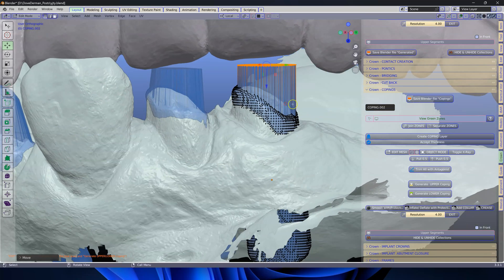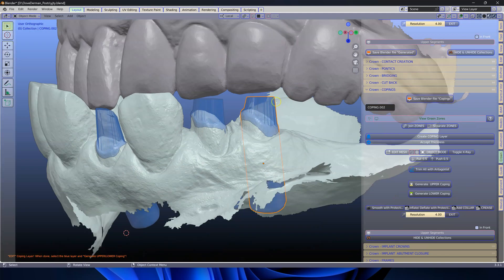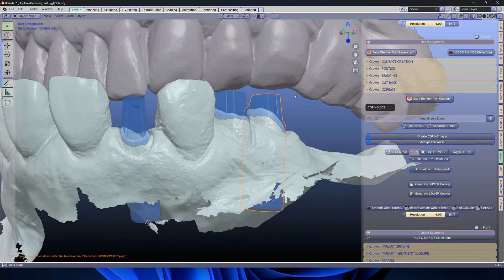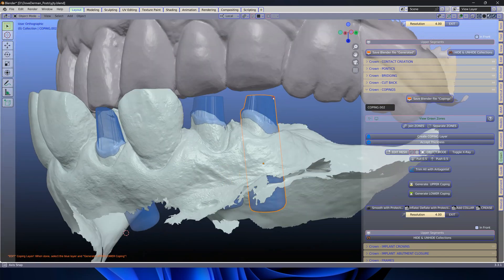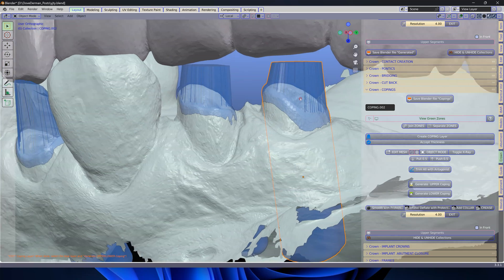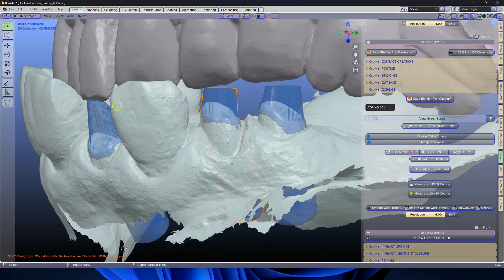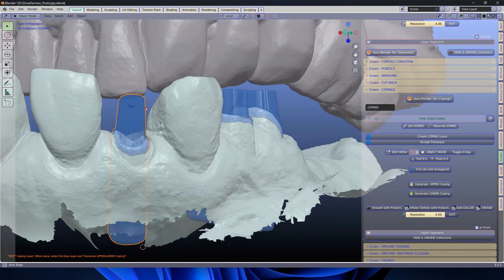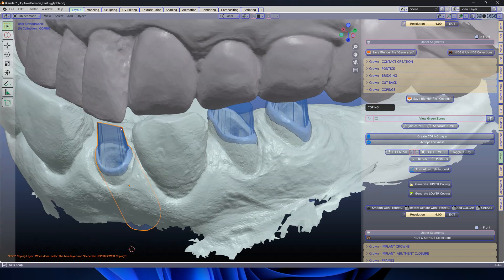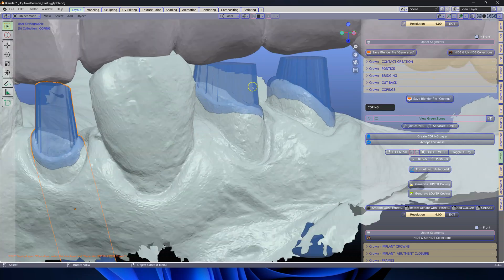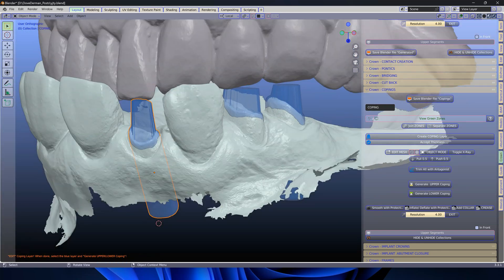This is looking good. S to scale to make it a little bit less parallel. Now ideally I want to sculpt smooth these because they've got a lot of ridges in them as you can see.